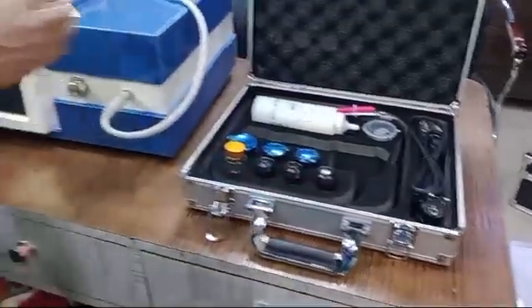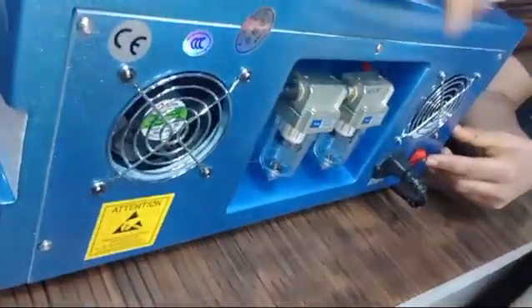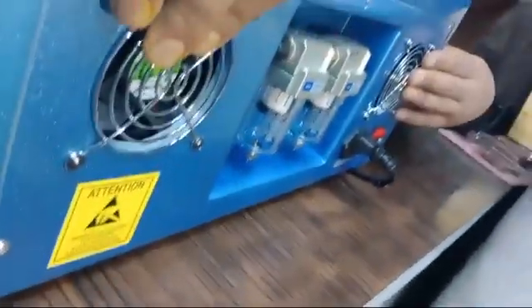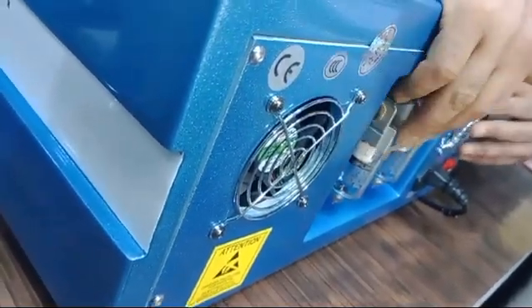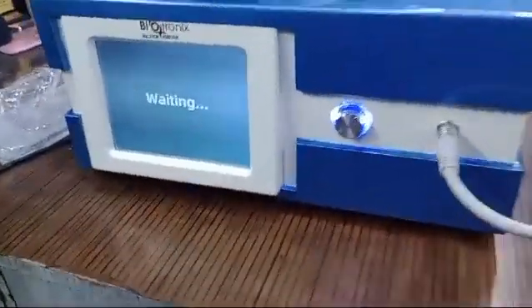This is the accessory box and this is the device. To operate it, click the switch-on button. You can see there are two filters with two fans for cooling. Usually devices have one filter and one fan, but our device has a dual fan and dual filter system. Now I'll switch on the device.